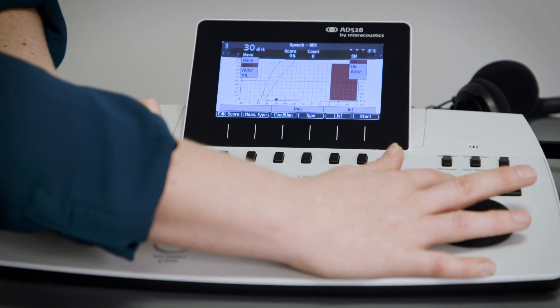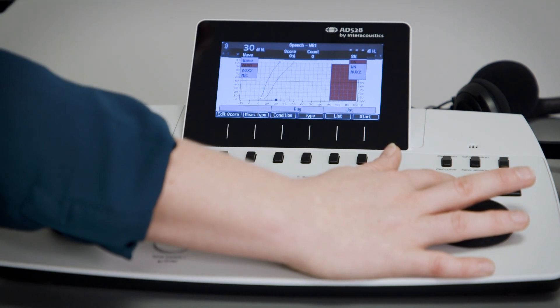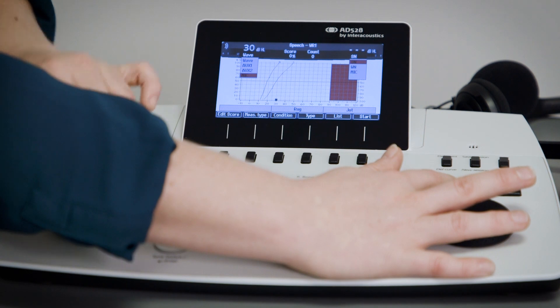You can change from WAV to an AUX, an AUX 2 on the other channel or the microphone underneath there. If you use a microphone or an AUX the first time you get started using your device, you need to calibrate the level of the output.